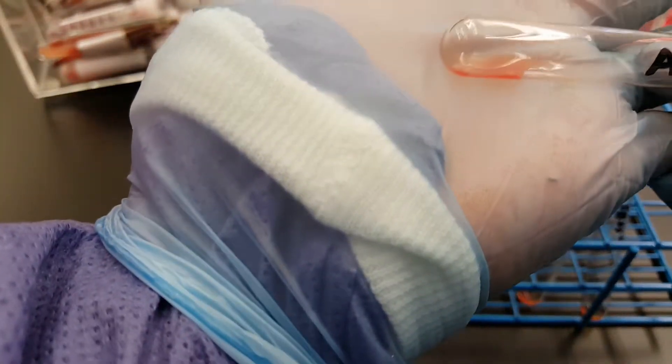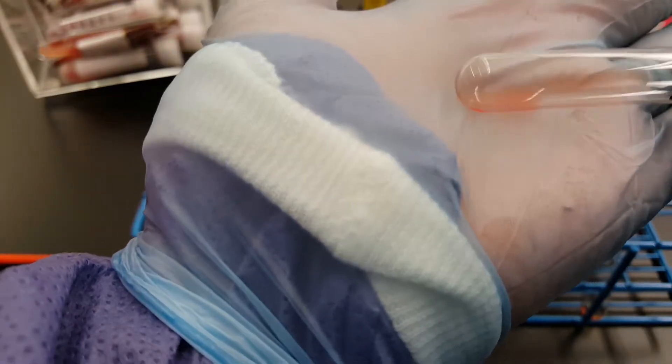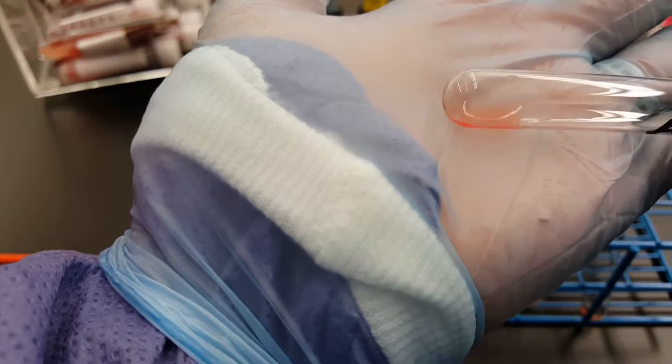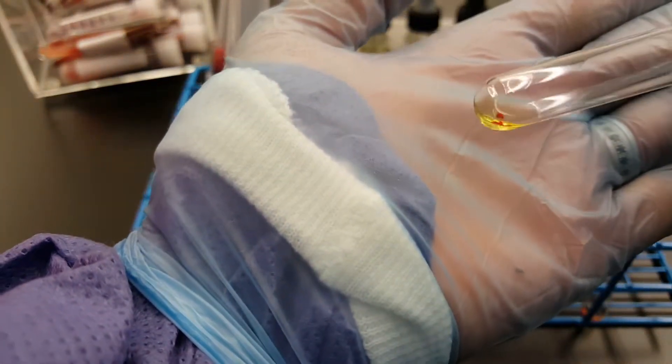So that means that it's not hemolysis. If it was clear and red, we would be thinking hemolysis there. So right now the person is B and that's a reaction of four plus, even though you can't really see it because I can't get my camera angle... There we go, there's a four plus right there. Nice and big button.